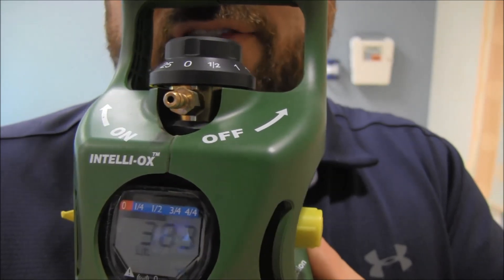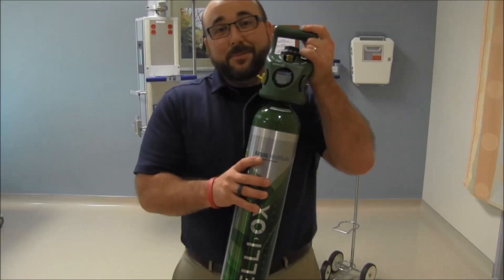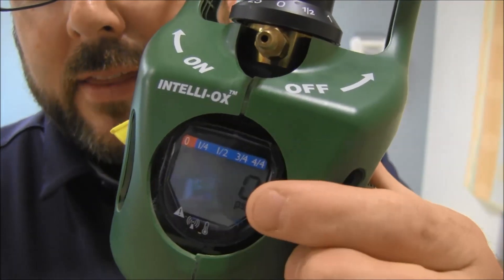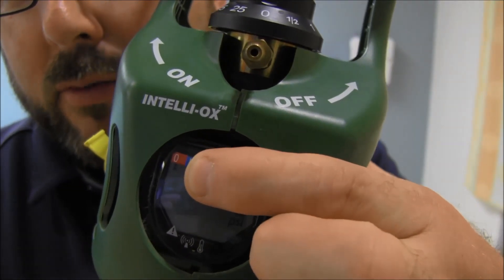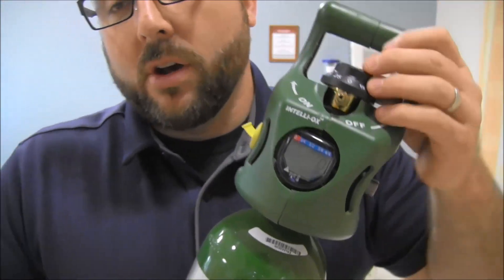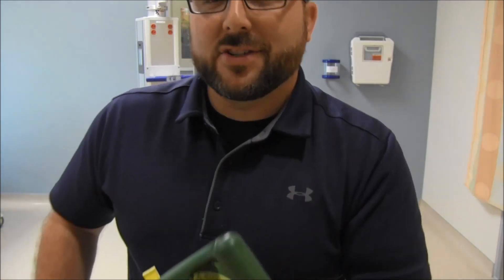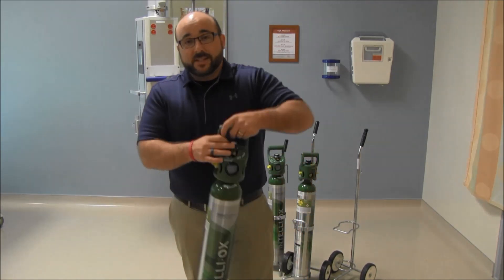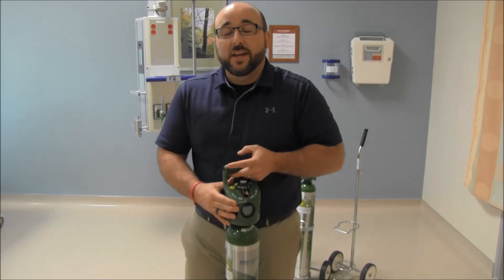Let me show you an empty tank. On an empty tank you'll see zero PSI, zero liters, and at the top there's just one small black line — you have nothing in here. Now this doesn't alarm when you turn it on with no oxygen. My guess is that in the oxygen storage room you'd have a bunch of tanks beeping constantly because someone left one on one liter on an empty tank — there'd just be an array of beeps. So it won't beep when there's no oxygen, but you definitely won't have any liter flow either.